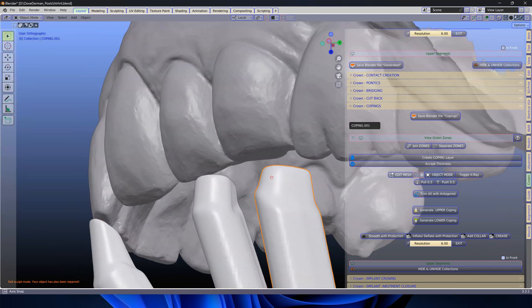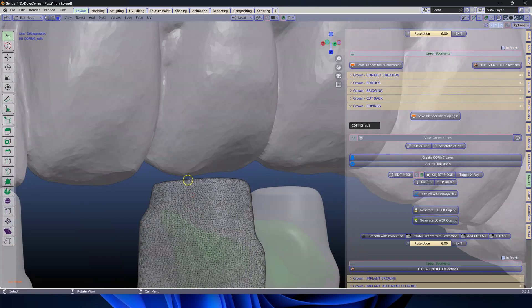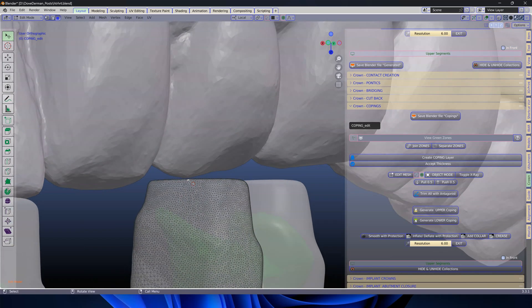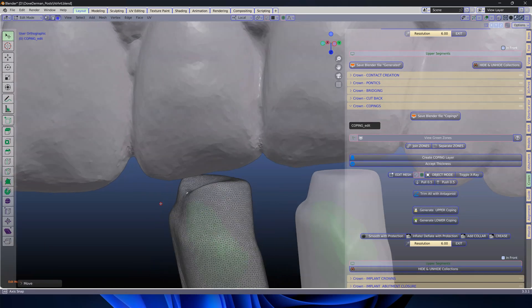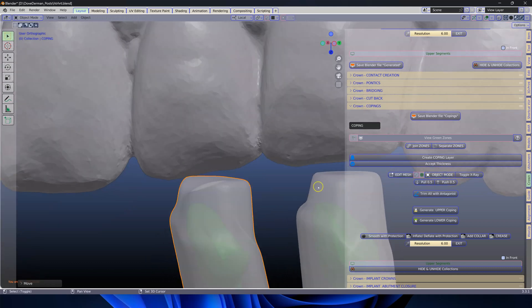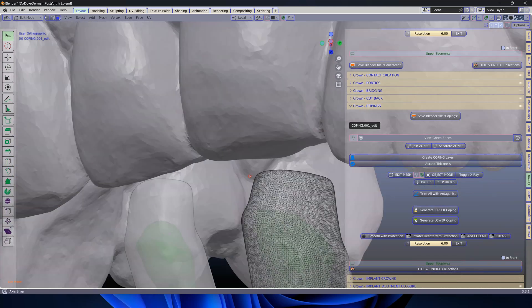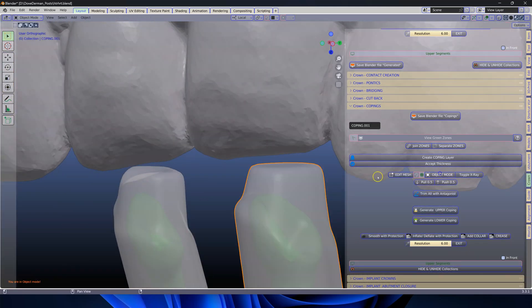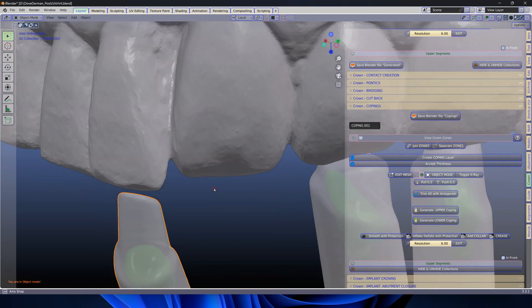We're going to exit and then I'm going to just check. Here for example, we're going to go into edit mode and I'm going to pull this down just a little bit. You can see how neat my structure is — my geometry structure. This is looking good. Object mode. I'm going to have a look at this one over here — this seems to be okay. And this one over here seems to be okay as well.